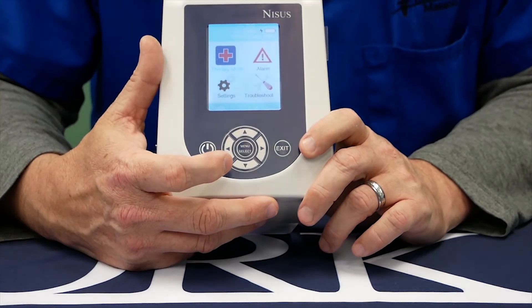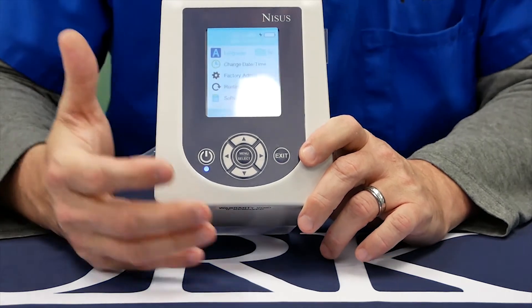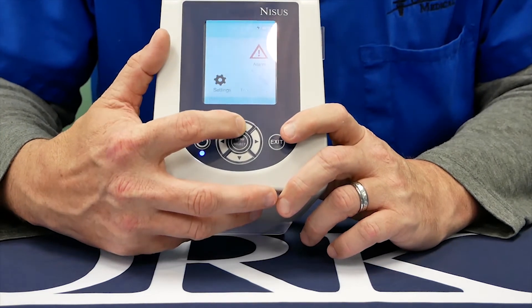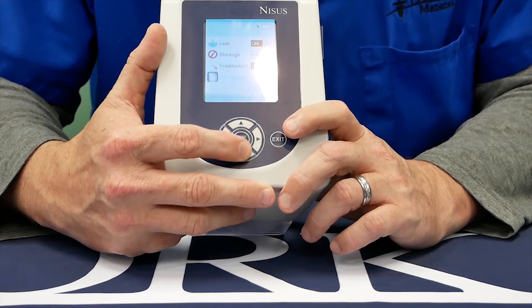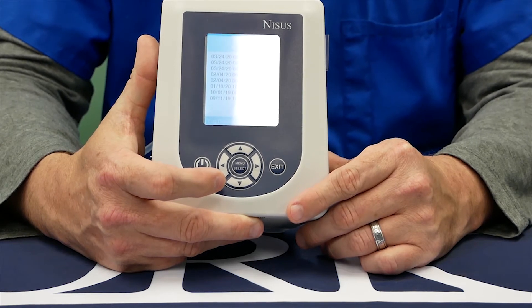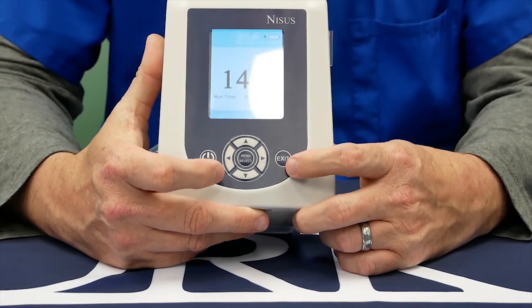The menu button also, underneath the settings menu, allows you to change this device from English to Spanish. Exit always takes you one screen back. If you go into the alarm menu, you can also review underneath the log display the last alarms of this pump with the date and times. Exit always takes you one screen back. You can hit exit until you return to the base menu.